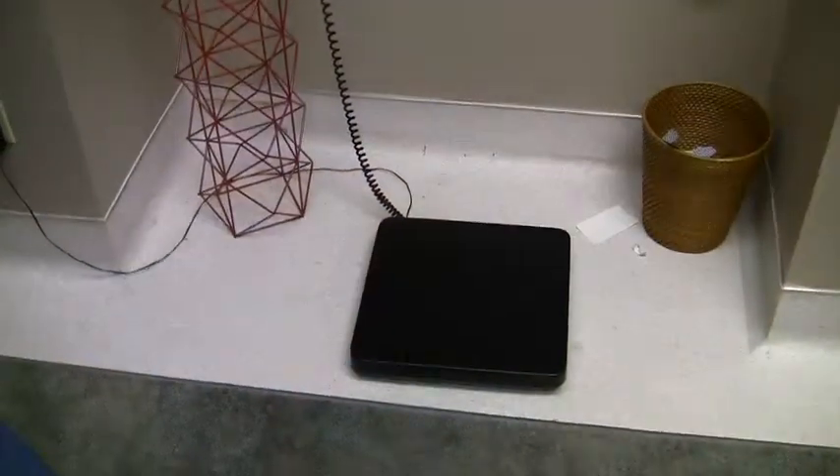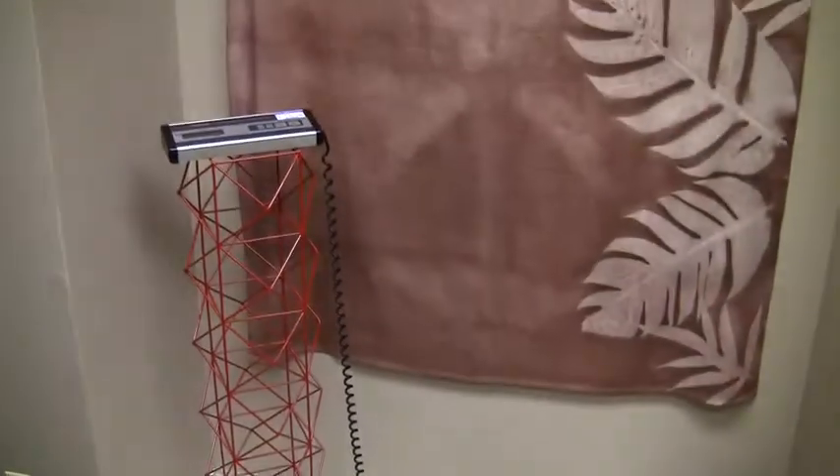This is where the team at Healthy Steps does Bioelectric Impedance Analysis. So what's Bioelectric Impedance Analysis? It's a way of getting at body composition. When you just step on a scale, all you get is a number — a weight — and it doesn't really tell you anything about health.